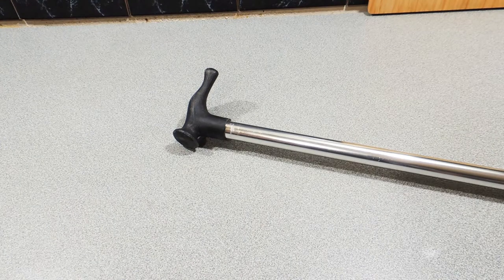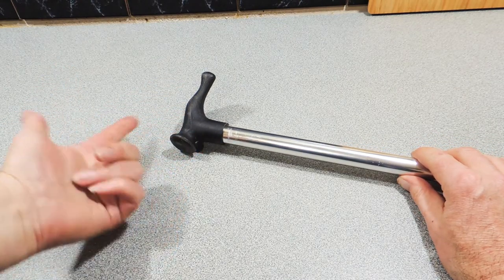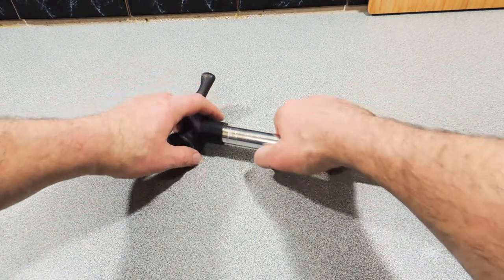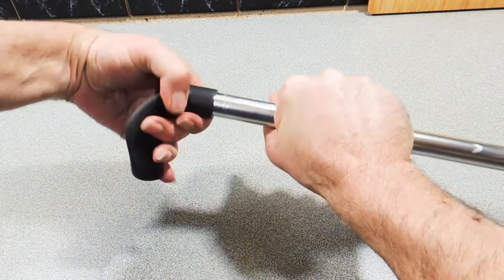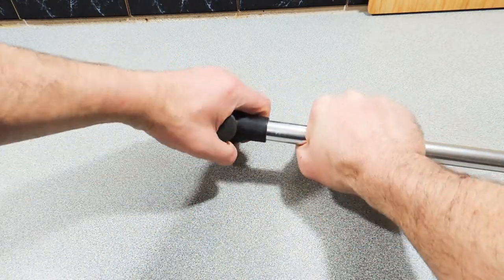Welcome back to KP's Kingdom, another episode of the MS Files. I'm going to show you something really cool. I've been using a walking cane now for about two months and it's time to bling this up, get rid of this old black handle. So we've broken the glue seal and we're going to remove that handle.